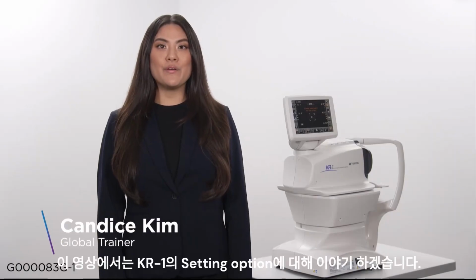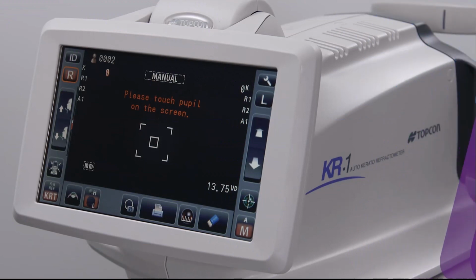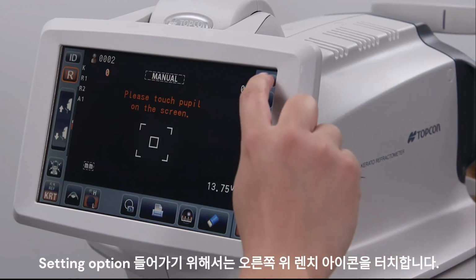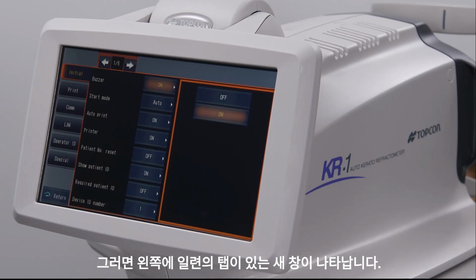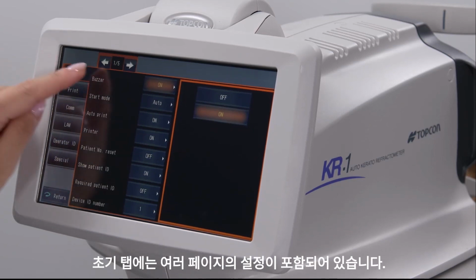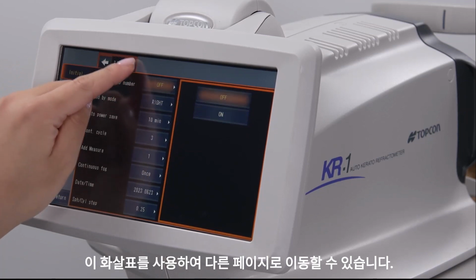In this video, we will be discussing the settings options for the KR-1. To access the settings menu, click on the wrench icon at the upper right of the screen. This will reveal a new window with a series of tabs on the left. The initial tab contains several pages of settings. Different pages can be accessed with these arrows.